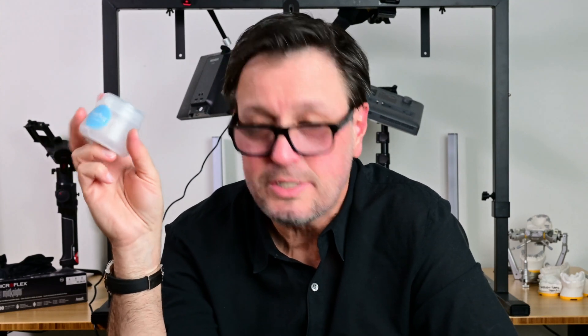Check it out at 35newtons.com. It's distributed in Canada by Clinician's Choice or Clinical Research Dental. I think you can buy it direct in the States off their website. It was a hundred bucks for an intro kit including the two instruments — that's pretty good. The instruments are nice, and I'm going to keep using this. I like it. So that's basically it. Thank you very much.